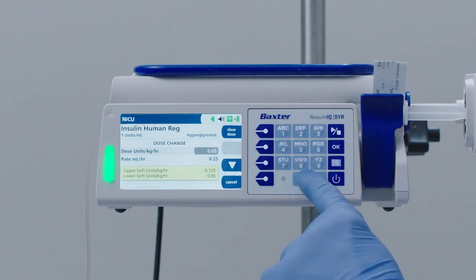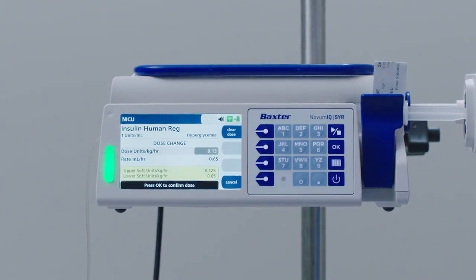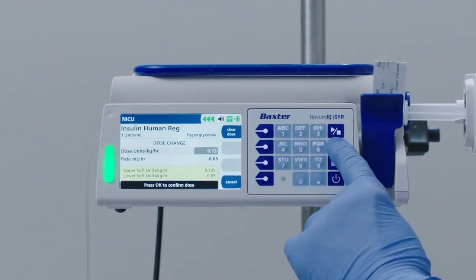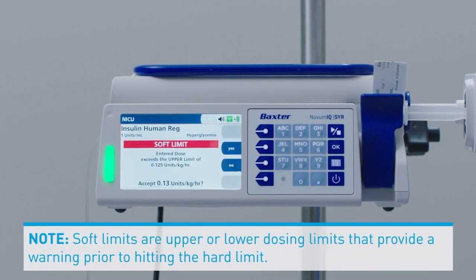Increase the dose rate to 0.13 units per kilogram per hour, which for this example would hit the soft limit. The upper and lower soft limits are displayed in yellow on the screen. Press OK to confirm the new dose rate. Note, soft limits are upper or lower dosing limits that provide a warning prior to hitting the hard limit.